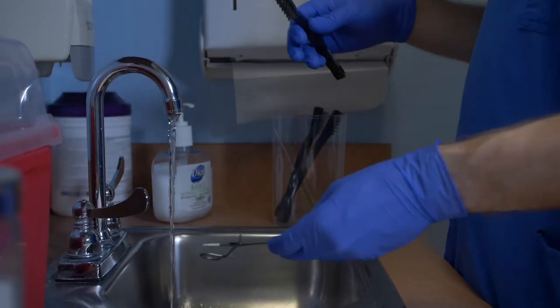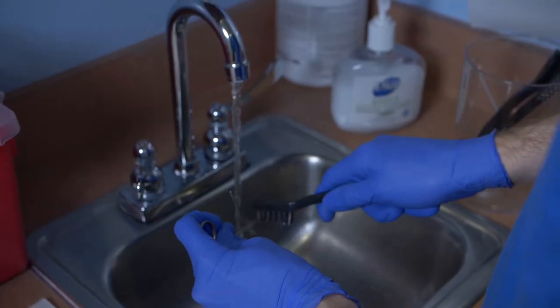Sanitize the items that require sterilization by scrubbing off all debris, then rinse and dry.